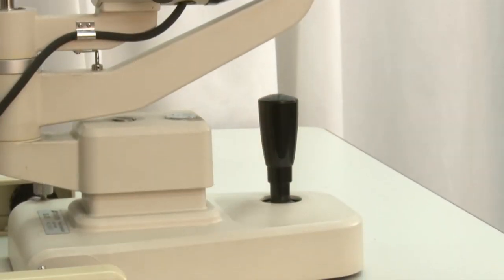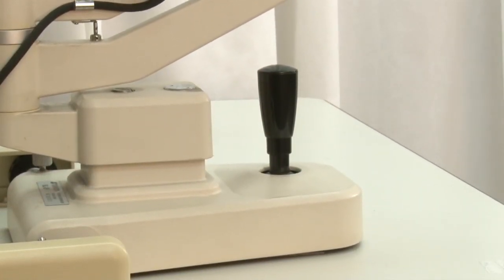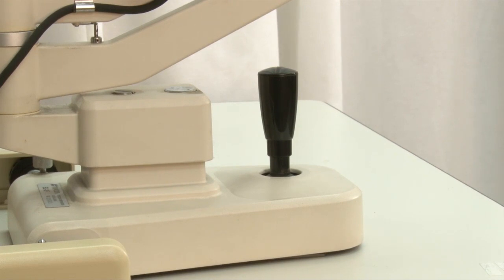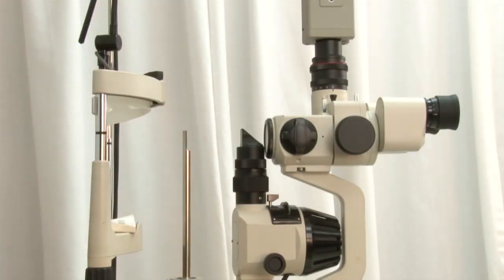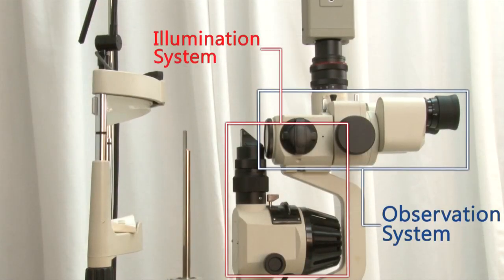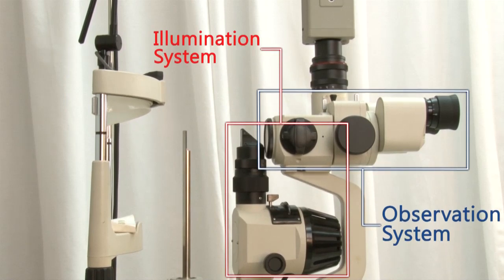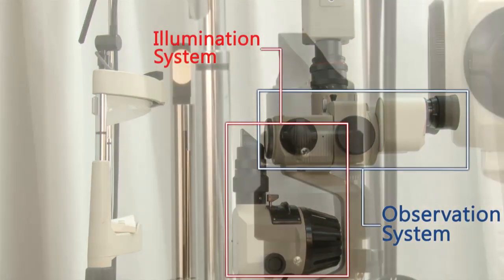This video will demonstrate how to use a slit lamp and perform different techniques. All slit lamps on the market have similar designs. They have two basic components: an observation system and an illuminating system.